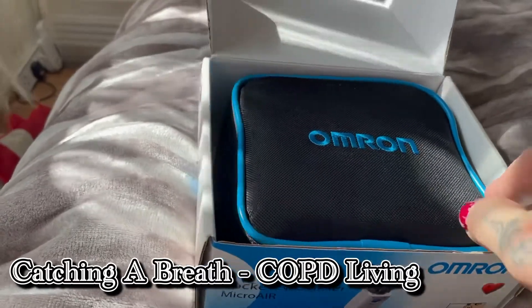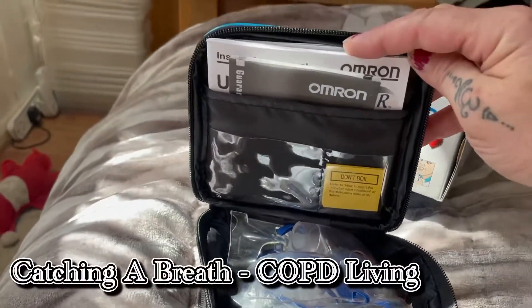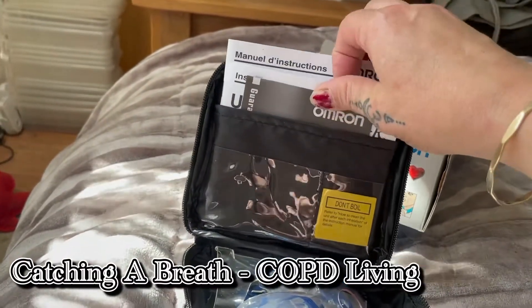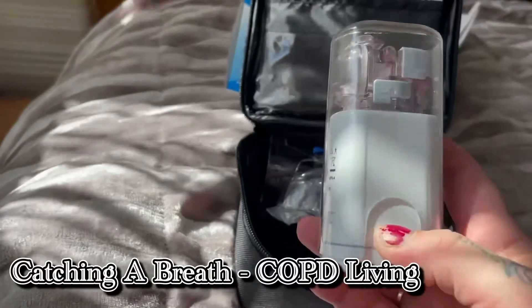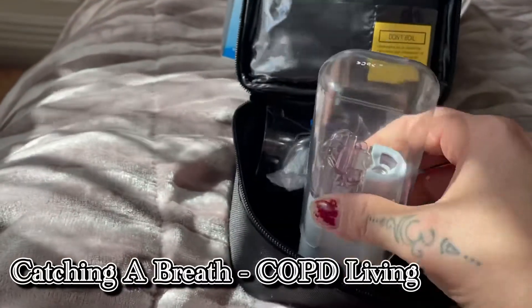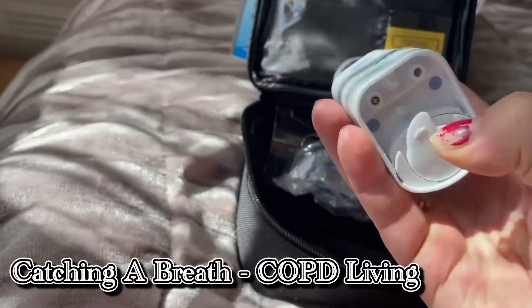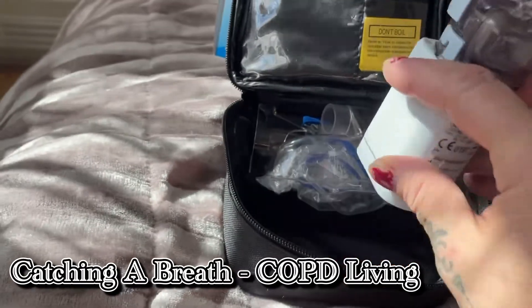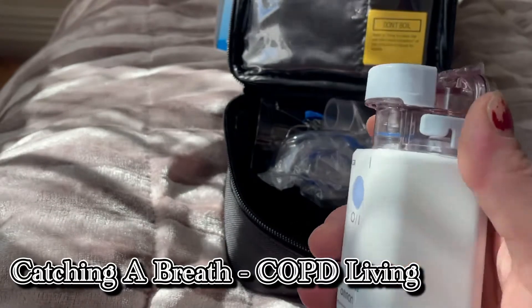OMRON have great products. It comes in a lovely little carry case. It comes with all your info, manual instructions, guarantees — that would have been in there if you'd bought it brand new. You can immediately tell it's hardly been used. You put the batteries in this section here, these two prongs here. Or if you were to buy the unit with a power adapter rather than batteries, you can get them online. I've never used it that way because I've always used it as a portable one — I just want to take it with me everywhere, so I just keep batteries with me.